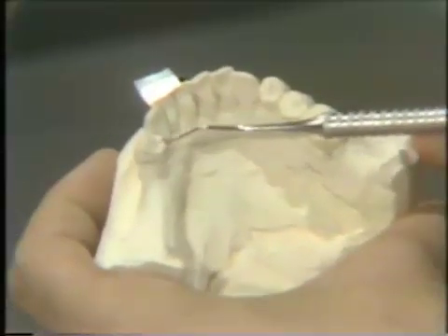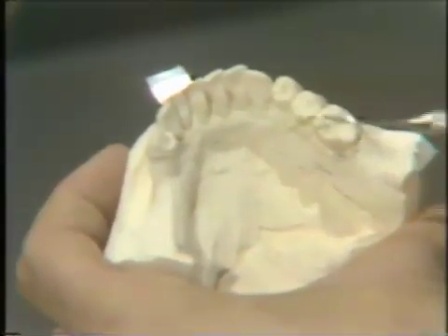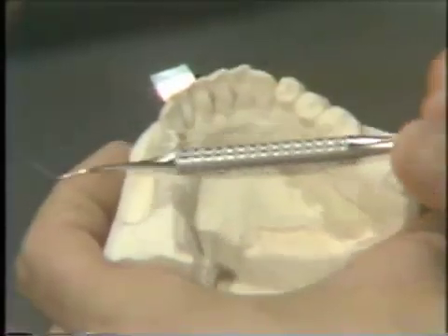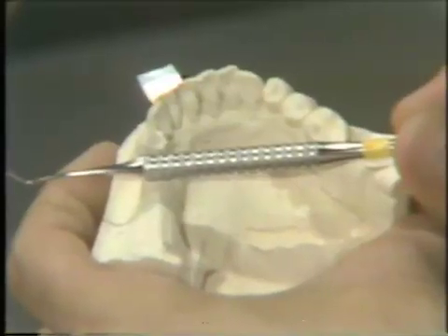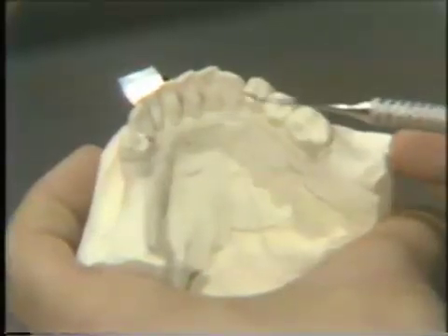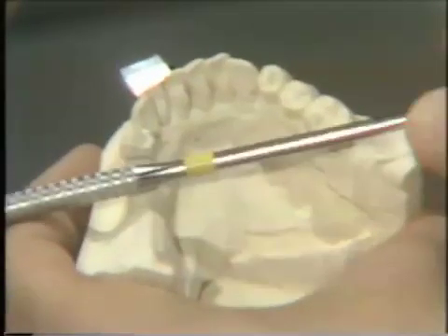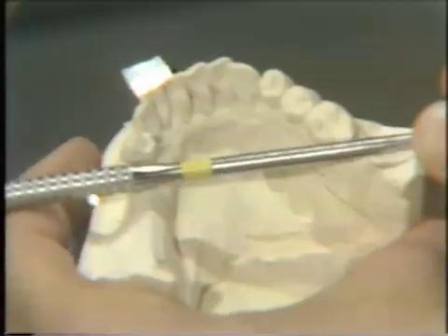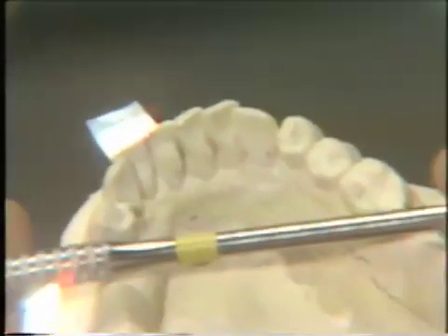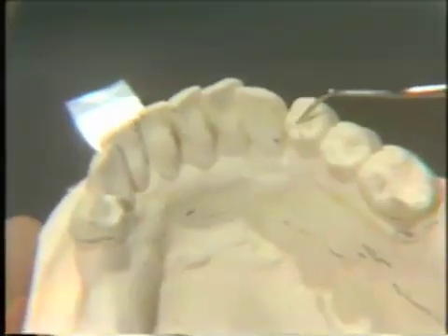The primary abutments will have an occlusal rest on the distal and reciprocating surfaces on the lingual, opposing the buccal retention. Another element we want to incorporate in the design is an indirect retainer, which helps to dissipate forces. An indirect retainer is best placed furthest from the rotation line, and the potential rotation line will be the distal rests of the terminal abutment teeth. The most logical point to accept a rest in this situation is the area on the bicuspid.